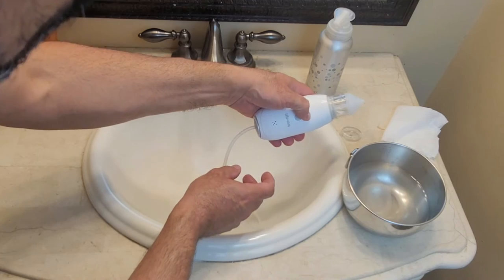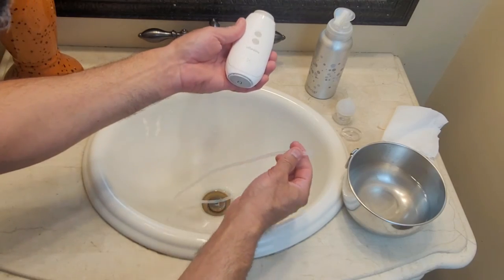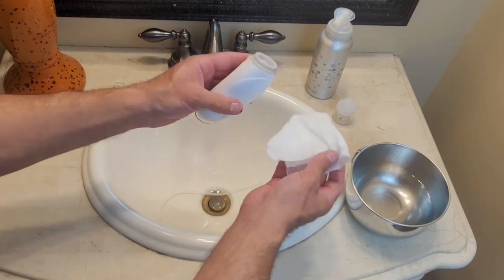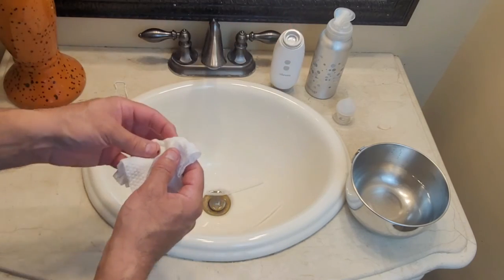When you're all done, turn it off, unlock your top portion, reapply your base, and then you can wipe this unit off with an all-purpose cleaner. Let that air dry and you're ready for next time.